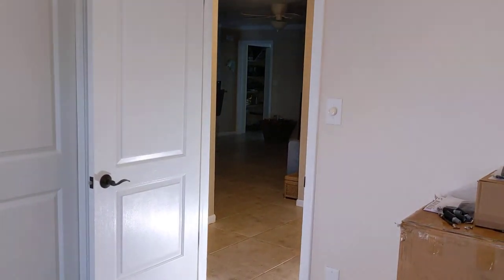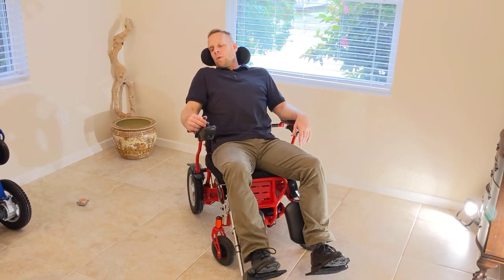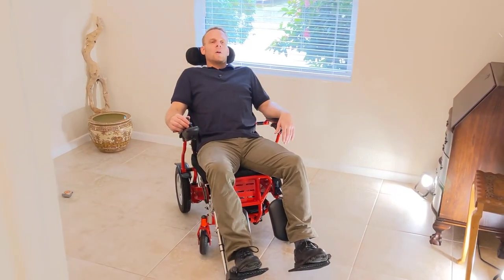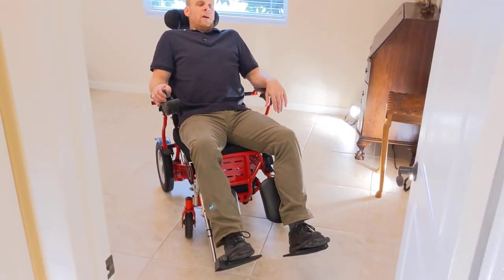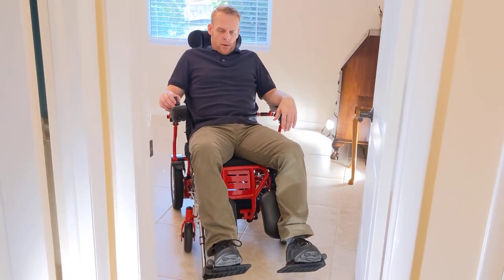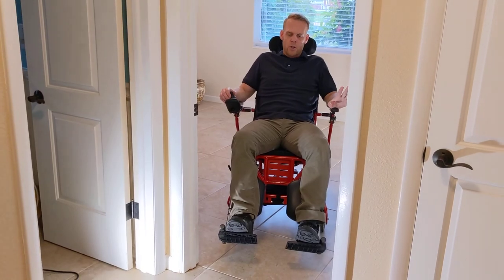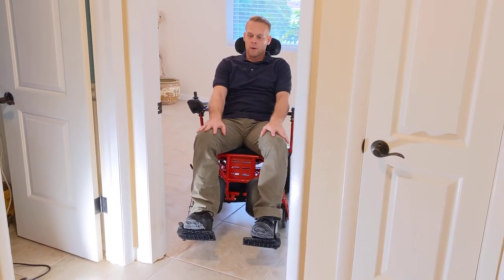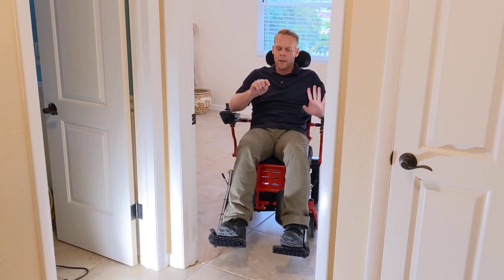Notice how I've got the joystick speed all the way down. One of the challenges is I'm coming out of a room with a flat wall and a door kind of at the end of the wall. We're going slow, not fast. So I'm going to have to come at an angle here. Now the joystick itself — if I cram it all the way forward it's going to open the throttle up, but if I just go a little bit at a time I can actually lower my speed, which is what I want to do. I'm going to try to get as close to this door as possible. If I was able to do this with an Electra 7 with the armrest extension kit and have virtually no space, an inch and a half should be plenty. But still, I want to be very cautious. If I have a knee injury and my legs fully extended, I want to be extremely aware of what my legs are doing.